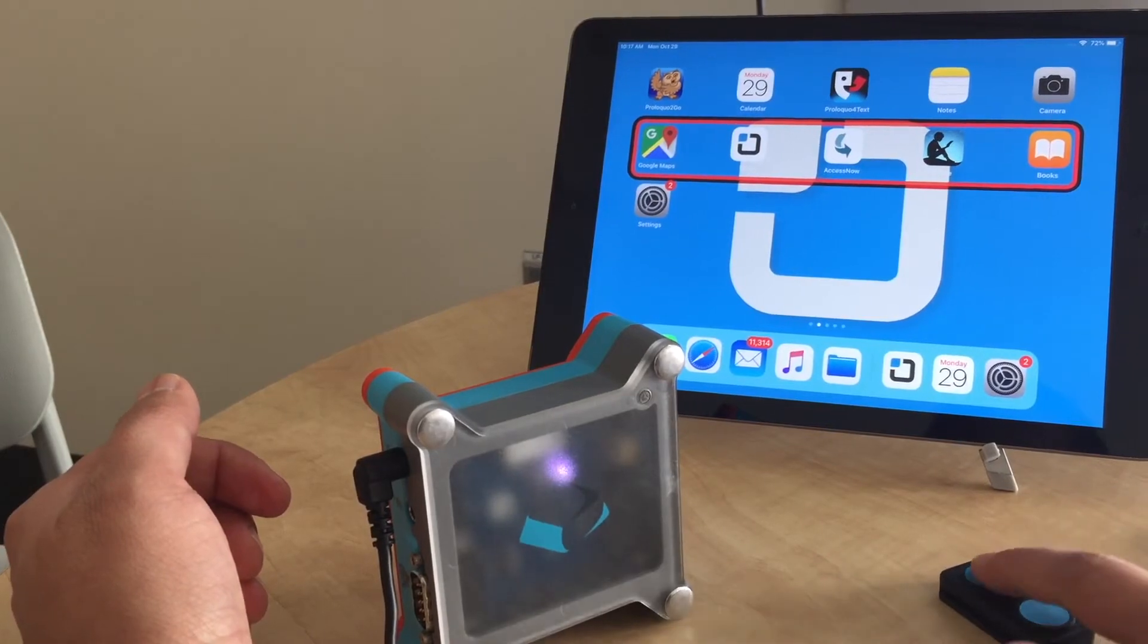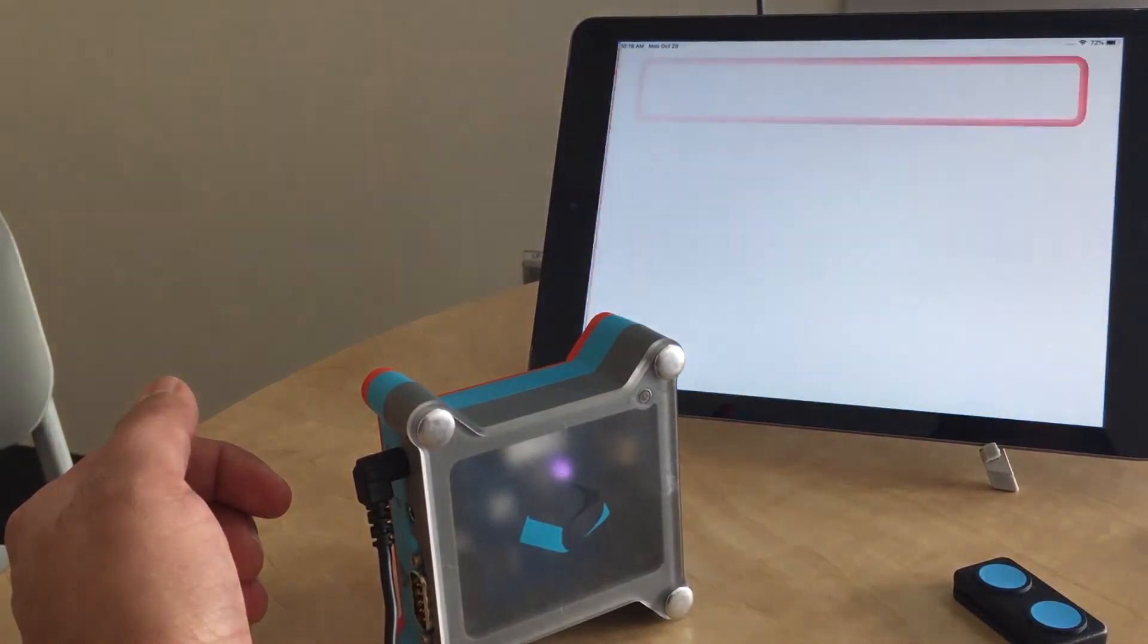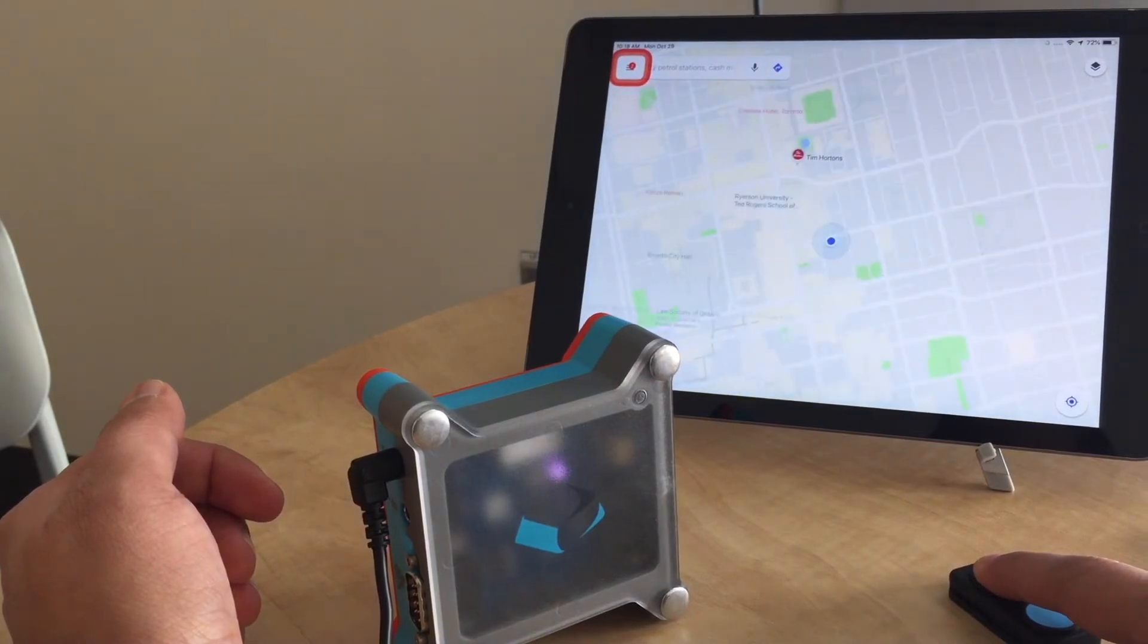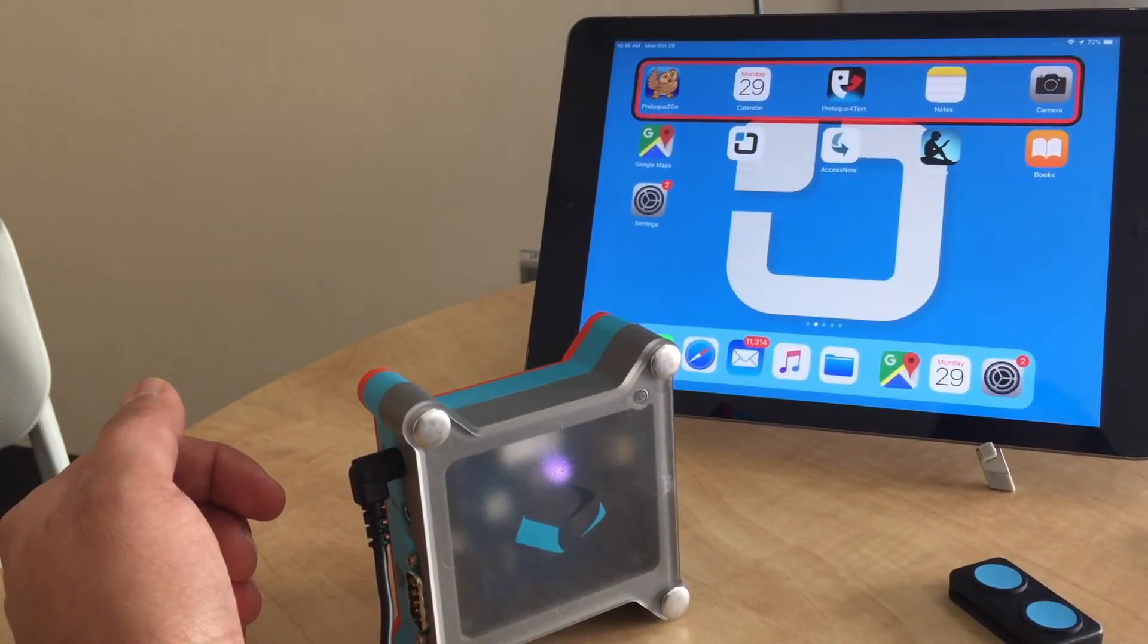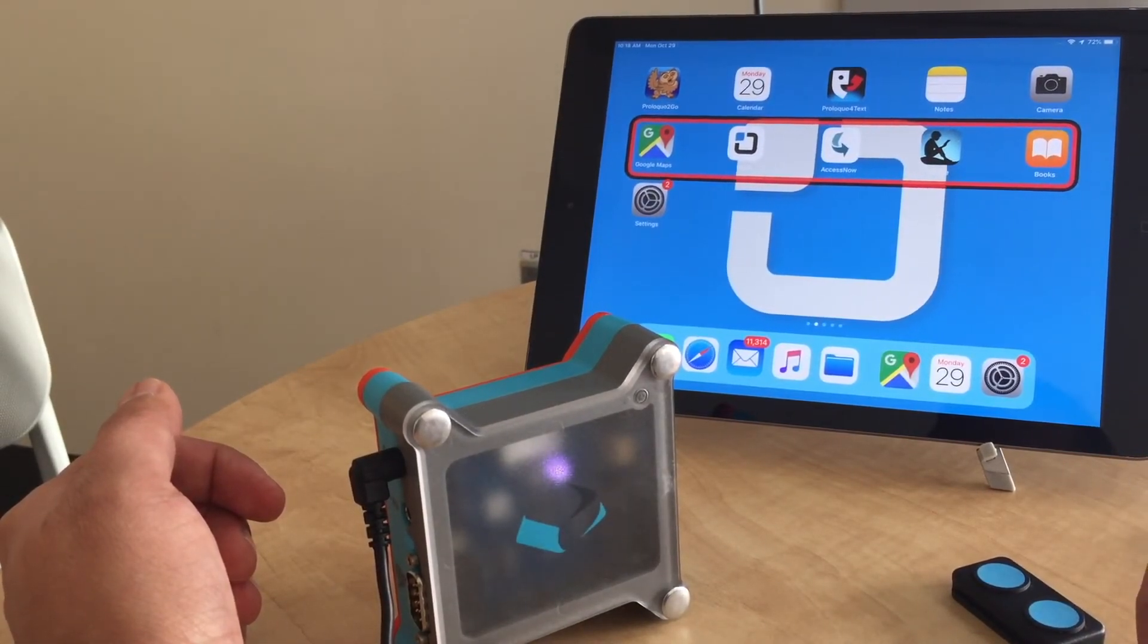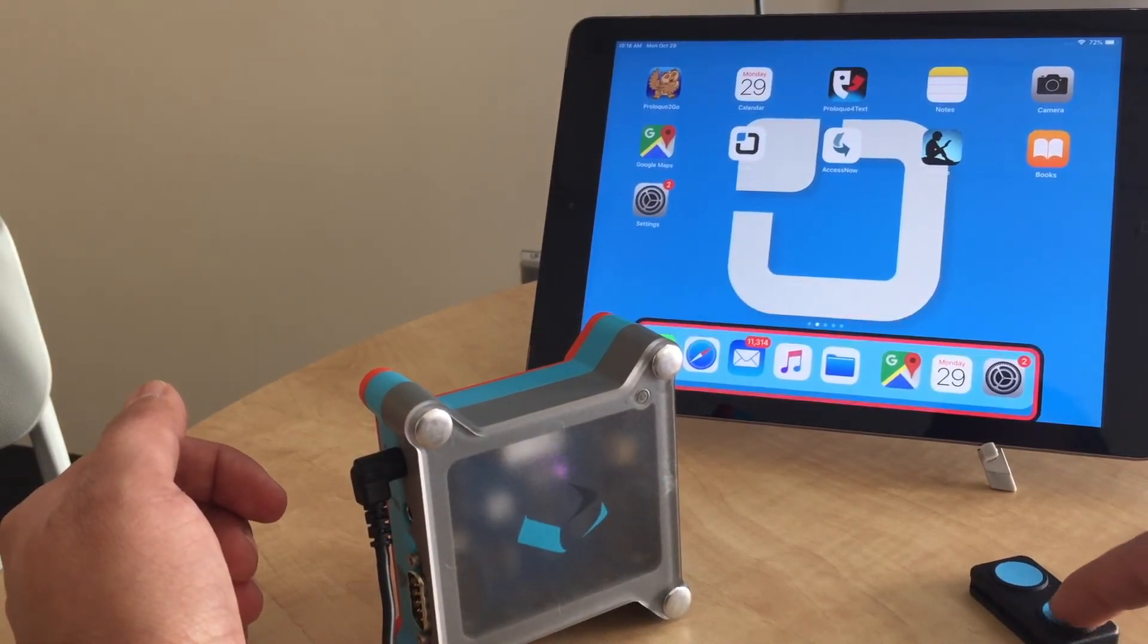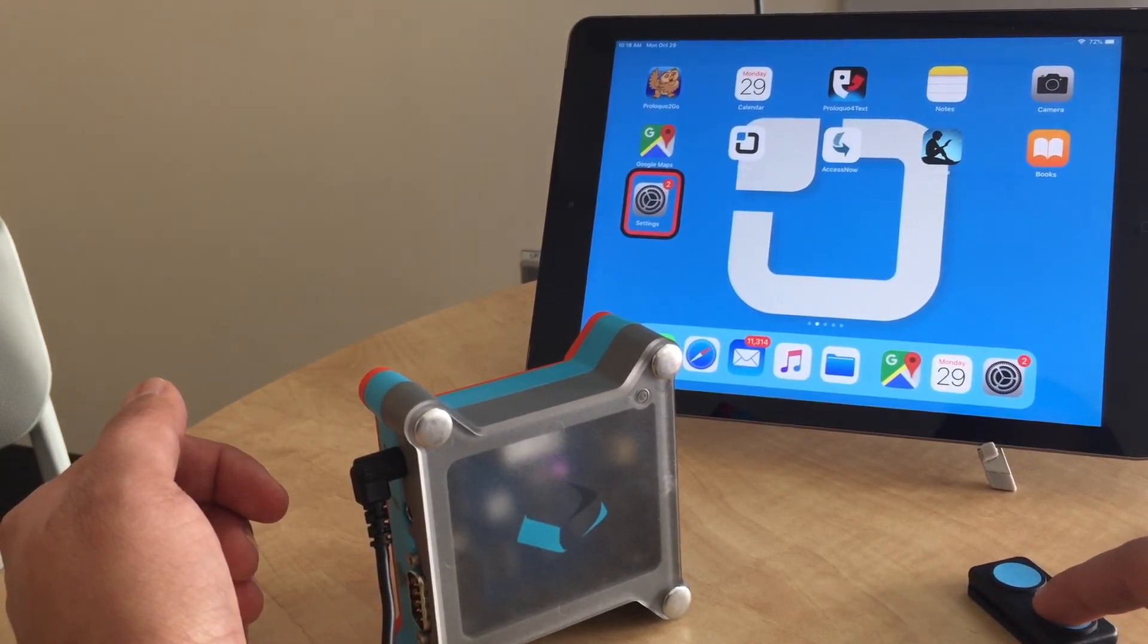When I select an app and go into it, when I press and hold, it's going to take me home. So long press is now active. The way to verify is just set your iPad to step scanning, and if you press your switch and it moves when you press the switch, not when you release it, it means you're in the right mode and long press should be working.